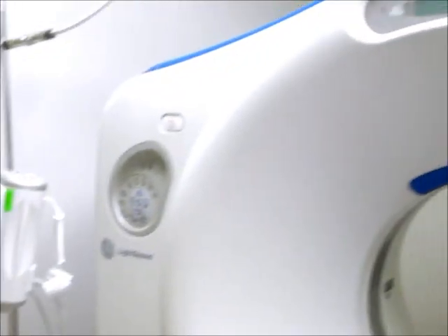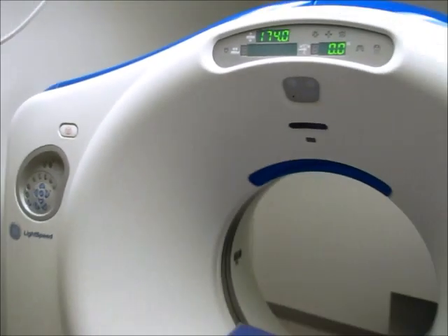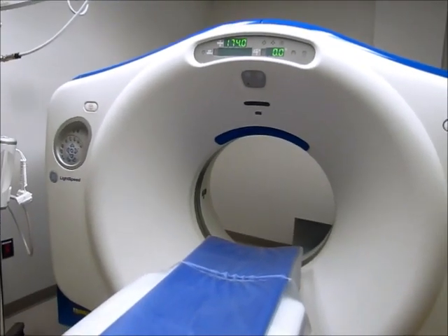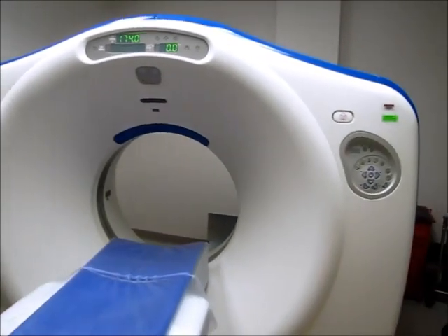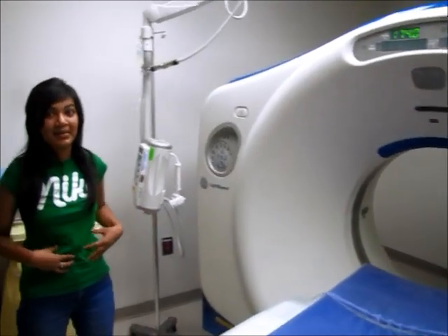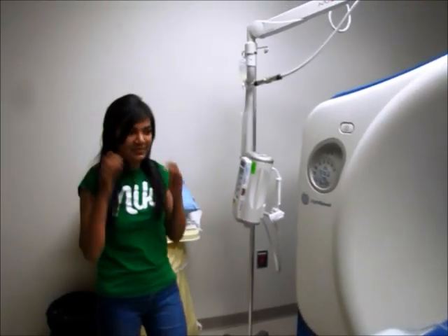Hey, it's Rhea again, and today I'm here with a CT scan machine, also known as a CAT scan machine. This machine is used to diagnose tumors in the brain or in the stomach. It's also used to diagnose other problems you might be having in your stomach or your brain.